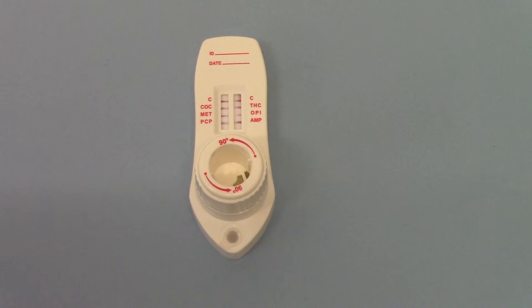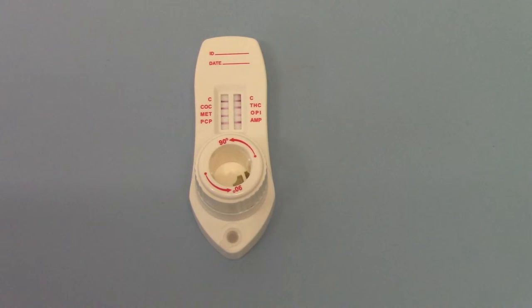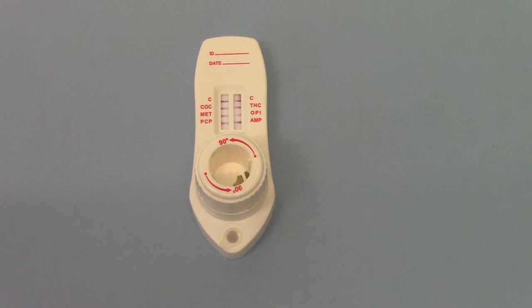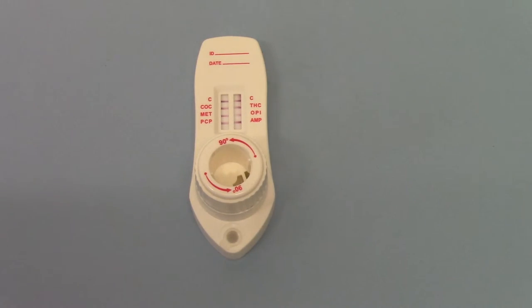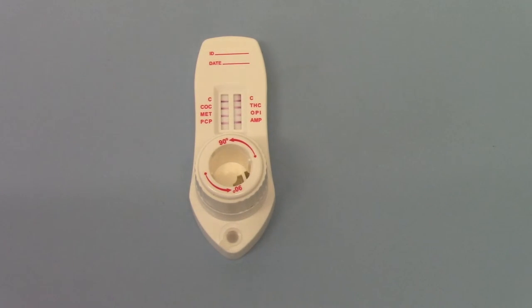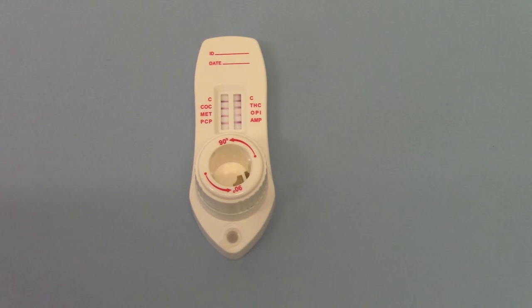A positive test is indicated by the presence of a control line at the top of the membrane with no line discernible at all at the read time against the drug group coding.